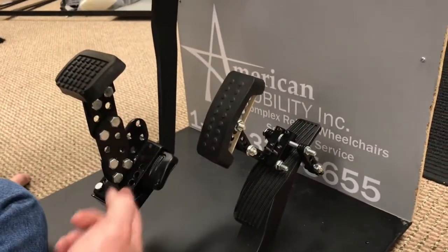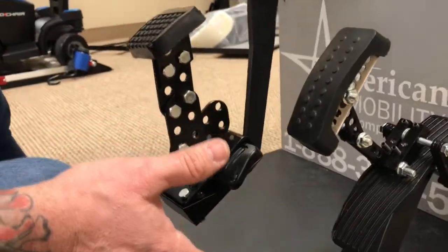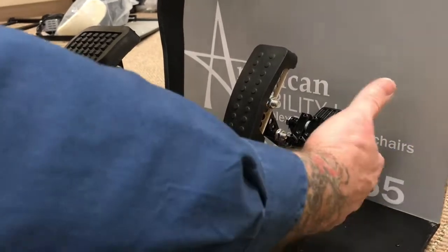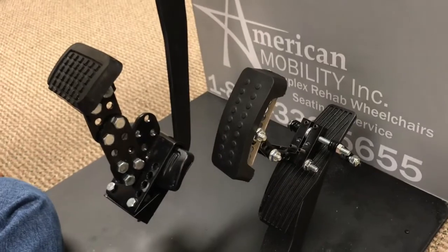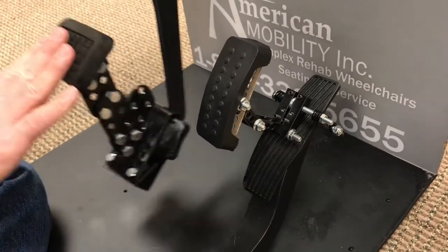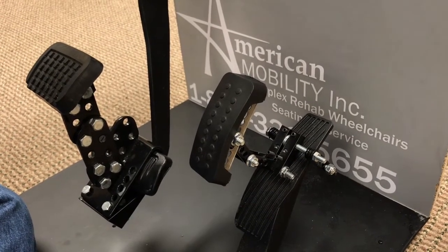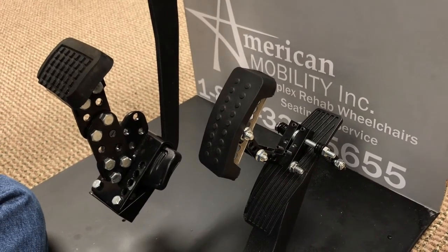You can flip the bracket upside down, move it around, get your own angle — the point is they can be done by anybody. Once you're done, make sure all your stuff is rock solid and nothing is moving around. Tighten everything up and take a look at what you got. They're very solid, very good. Every once in a while you might want to go in and check them to make sure everything is cinched up and good — very good product.